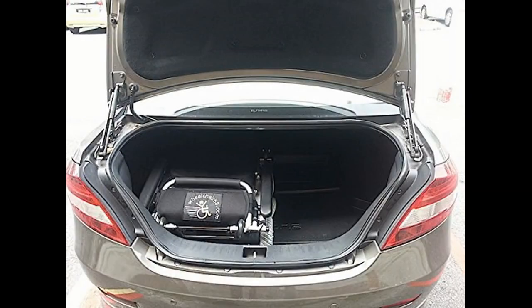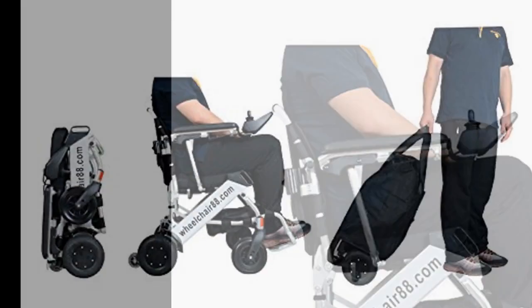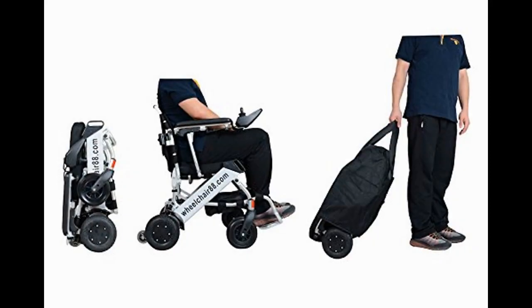It's even more compact than her regular transfer chair. The chair is well made and, if one can say this about a wheelchair, beautiful. We get a lot of compliments whenever we go out, as people have never seen a chair like this before. The welds are strong and the chair feels very sturdy.